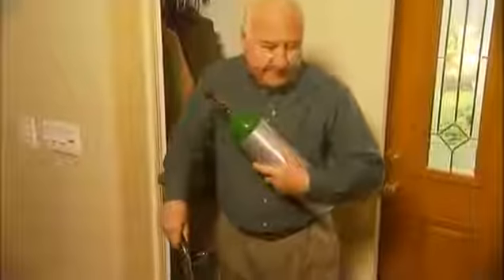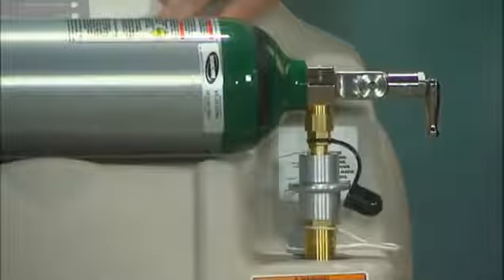To supply sufficient amounts of oxygen, providers had to supply larger cylinders. A cylinder cart was often used to roll the heavier cylinders, but that too proved challenging because it was difficult to move about and carry groceries, bags, or other shopping items. Once the compressed oxygen in your cylinder is used up, the cylinder will need to be refilled before you can use it again.